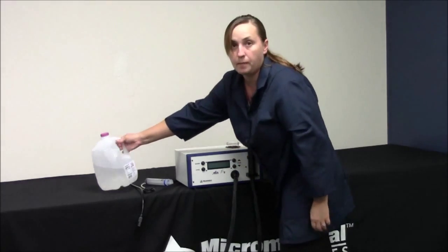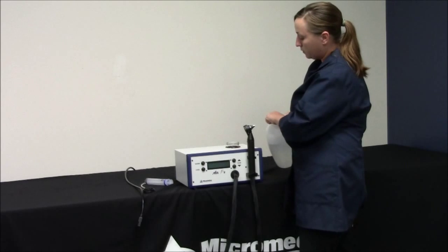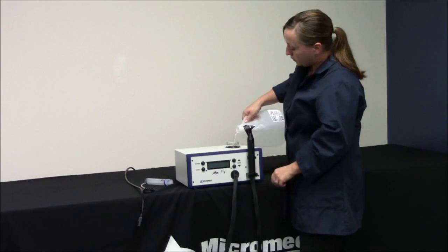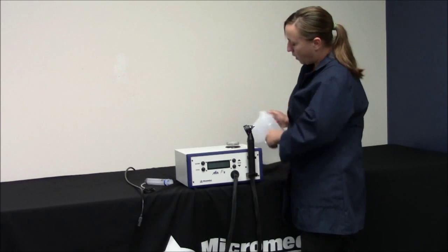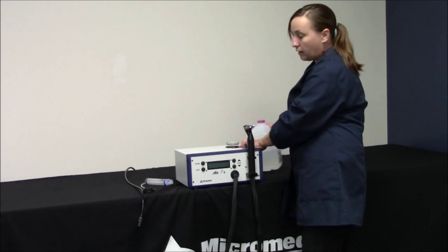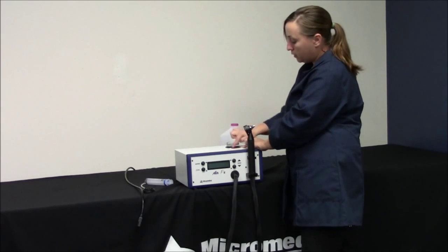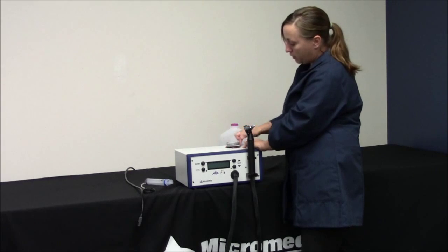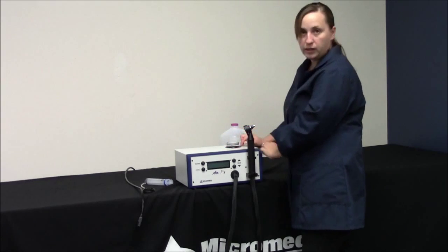Next what I'm going to do is I'm going to top off the water reservoir. Ideally you should always be able to see your water. So if you start noticing that the water is falling below our O-ring here then you should top it off too.